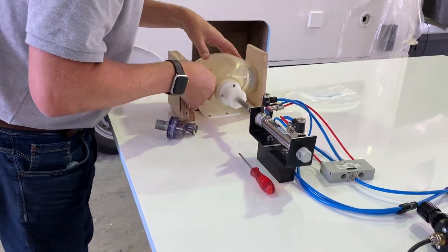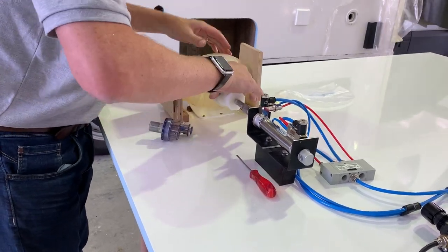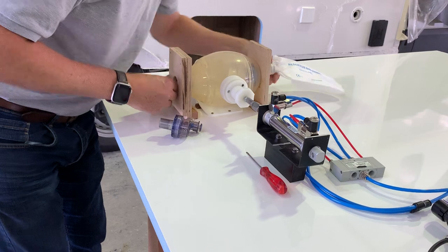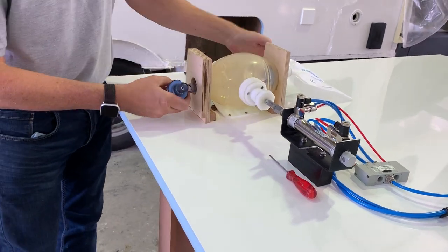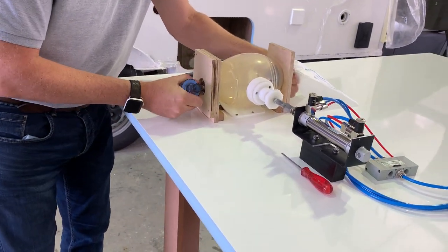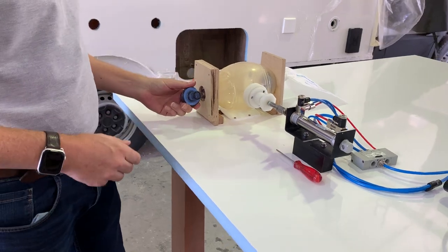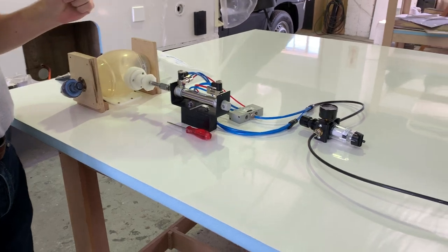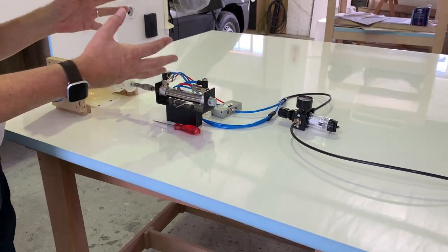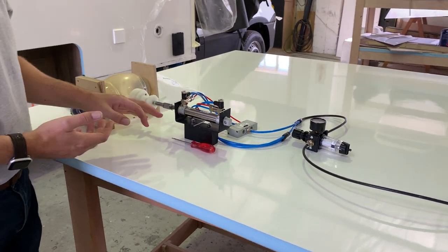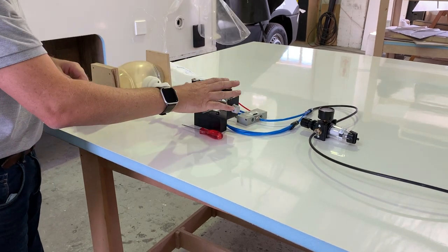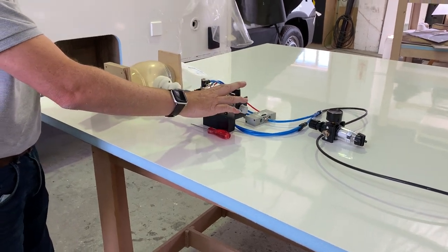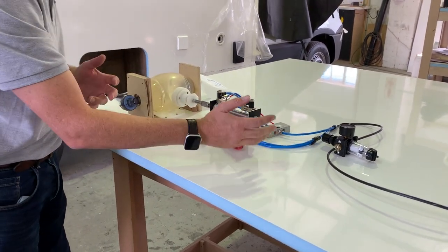Then it works on compressed air, so you need compressed air. We can also deliver the unit with an air compressor should it need it. You will see that the air system, the drive system, is isolated. So it doesn't matter, I suppose, of the quality of the air because the air to the patient is delivered by the BVM itself.